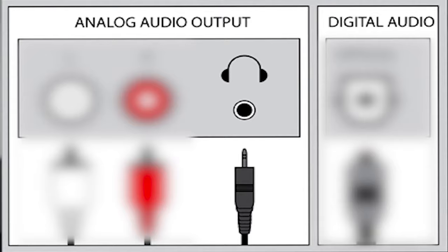Step one: the cables. When you open the box, you'll find the TV connector itself, a mini USB cable, a three and a half millimetre jack, and a Toslink — also known as a digital optical cable. You have two options when it comes to streaming sound directly from the television to the TV connector. Number one is the three and a half millimetre jack, which is normally plugged into the audio socket — the headphone output on any television or any device in fact.